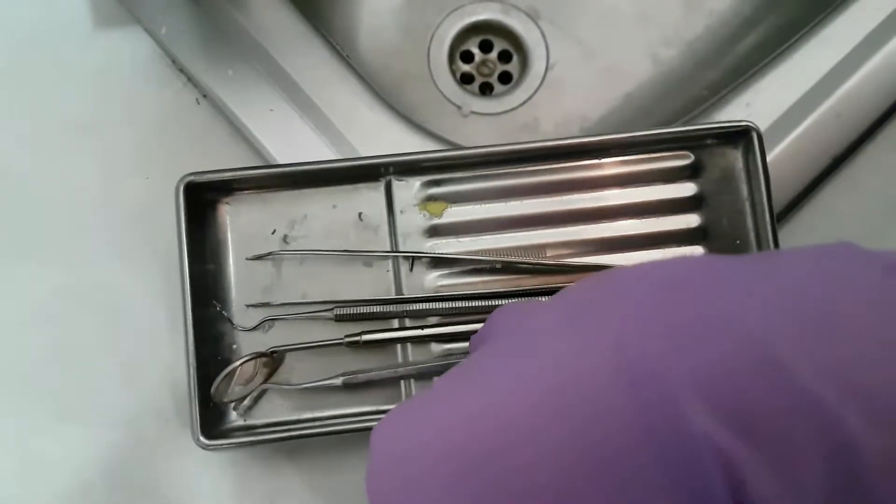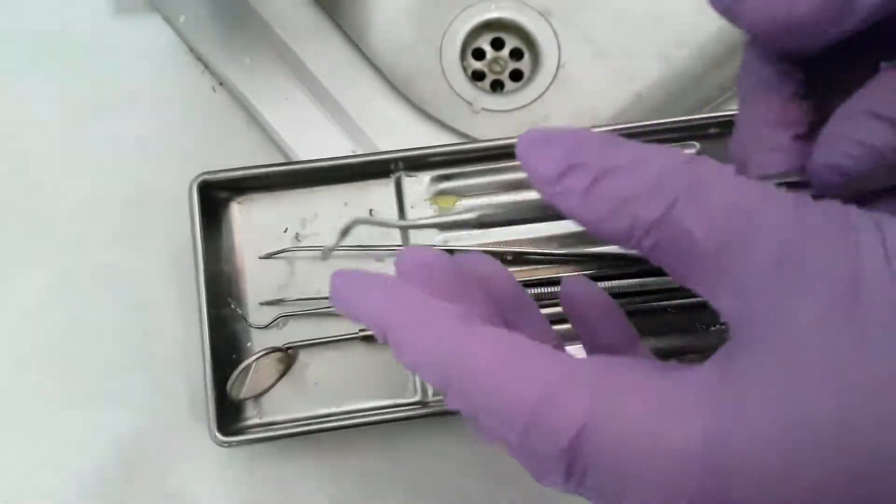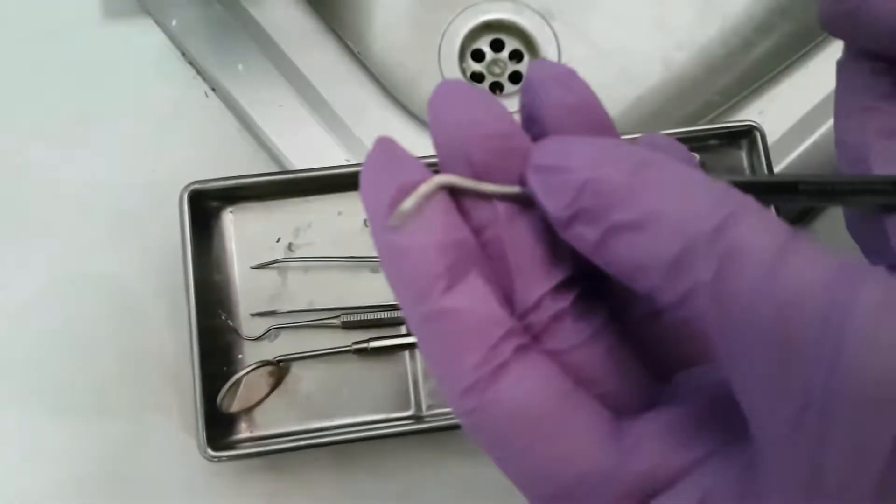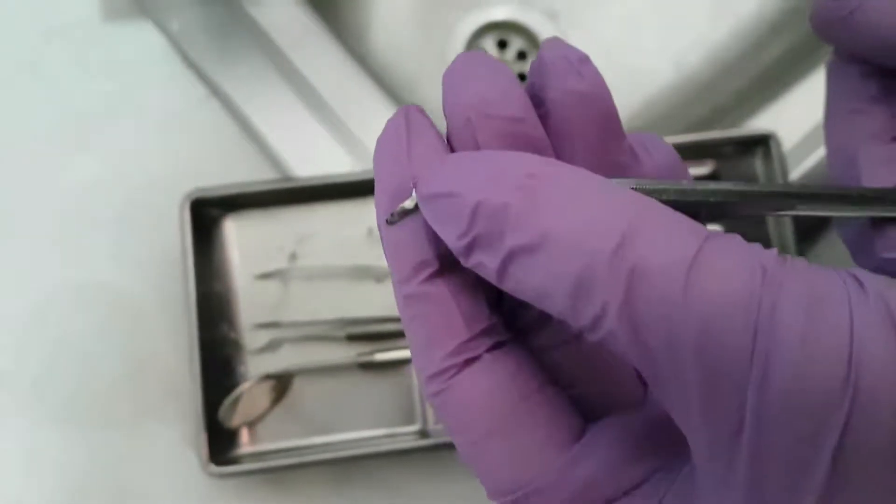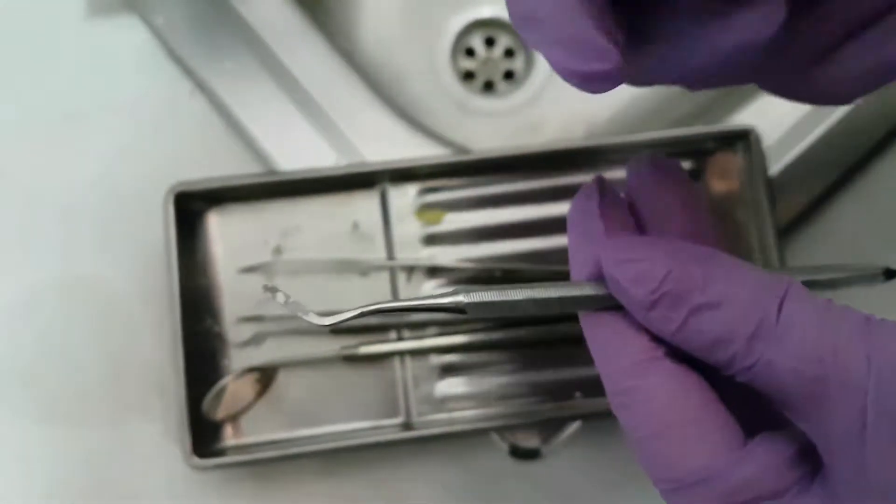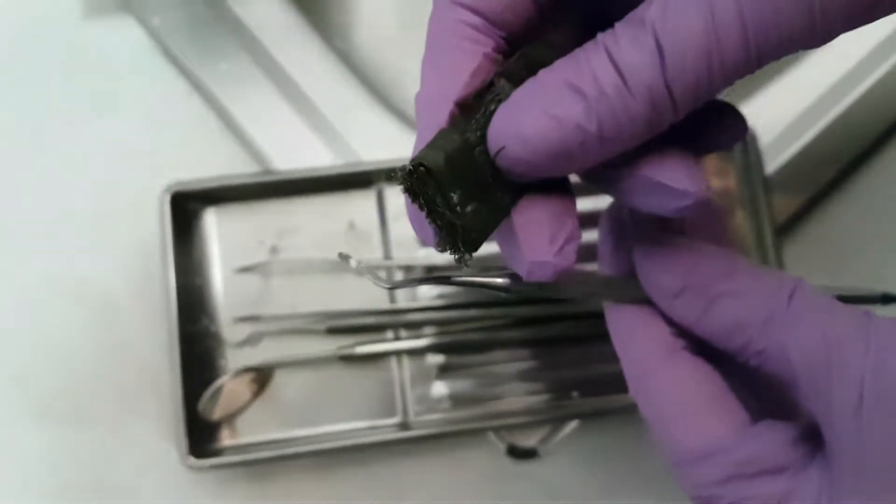First we will start with removing parts of medicine, teeth, blood and every remain that we have on the instruments.